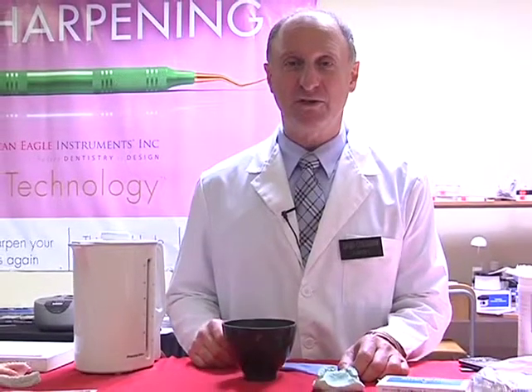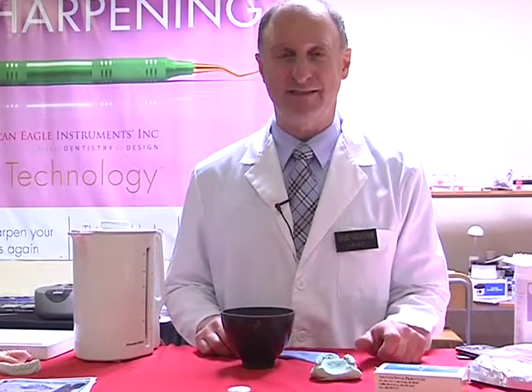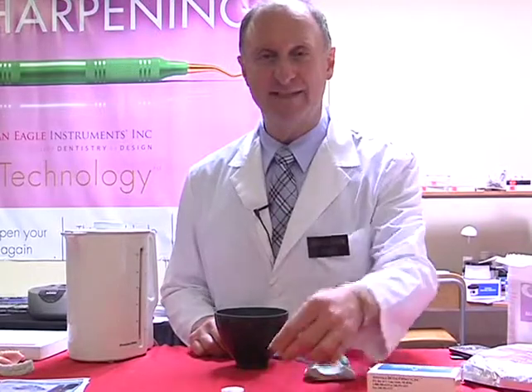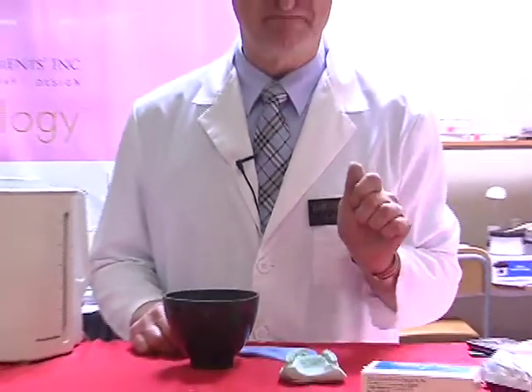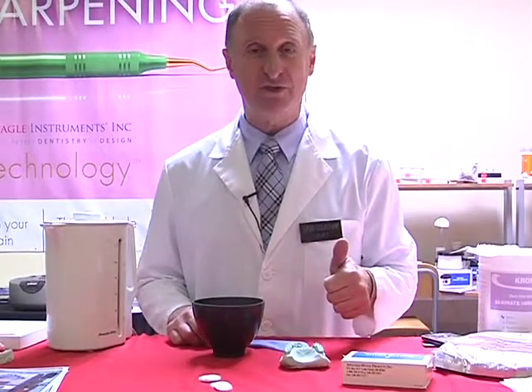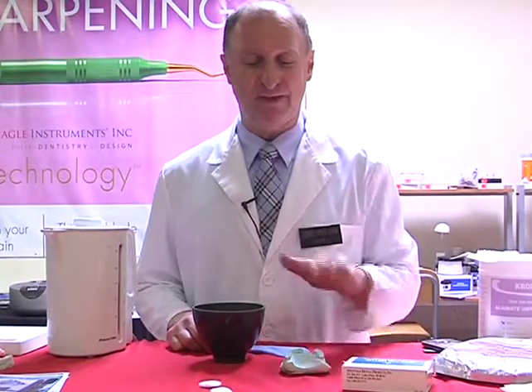I'm going to be showing you a material which is called the temporary crown matrix buttons, but we're going to be using this for a different purpose. This is a thermoplastic button. That means to say when we put it into hot water or apply heat to it, the material itself softens. We're going to use this to make a bleaching tray. So instead of making an impression, we don't need an impression tray, we don't need alginate, we don't need to model, we don't need to vacuum form, we're going to use this.